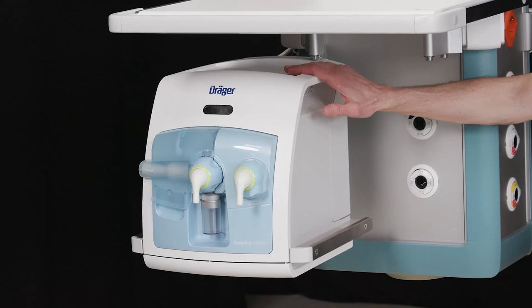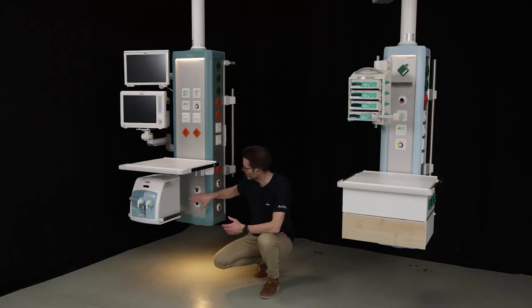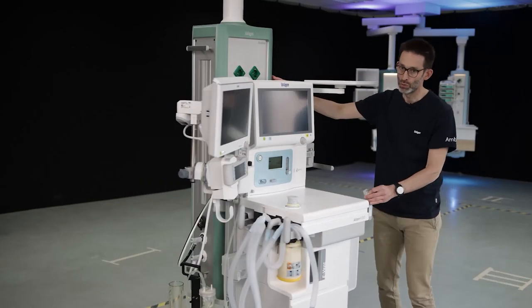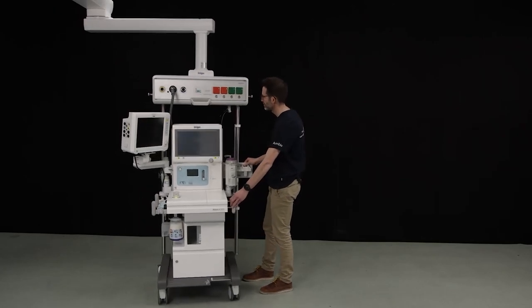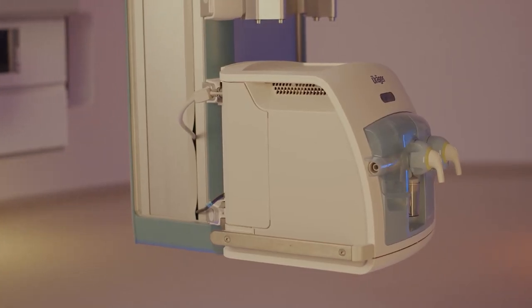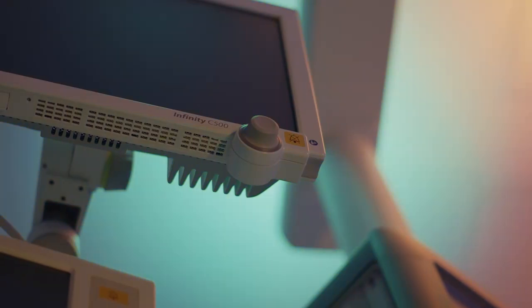Our new supply units can be optimally combined with ventilation or anesthesia equipment, as a lift system mounted on the column, or as a stand-alone solution in conjunction with a media head. An ergonomic workplace design that optimally supports the work processes can thus improve effectiveness and efficiency.